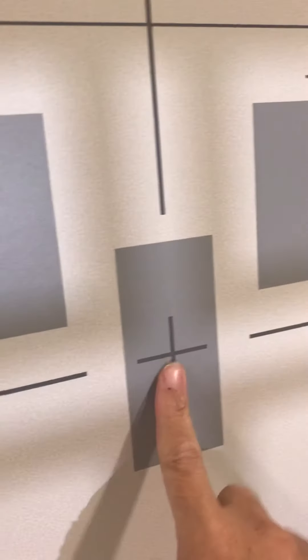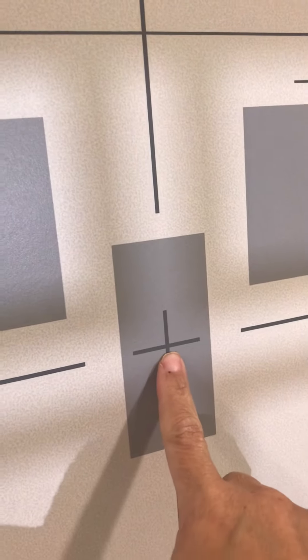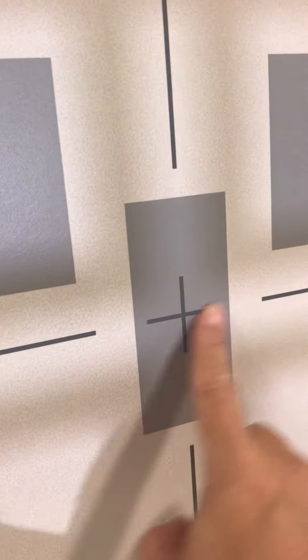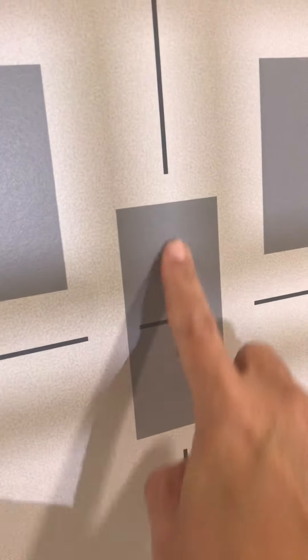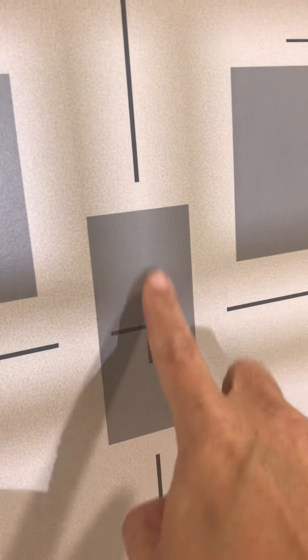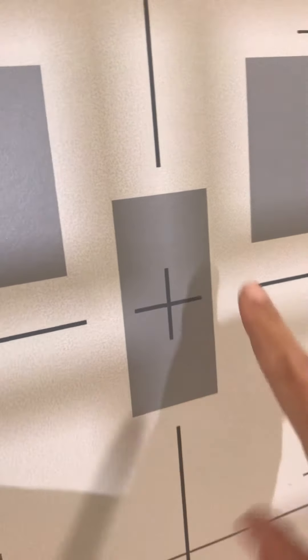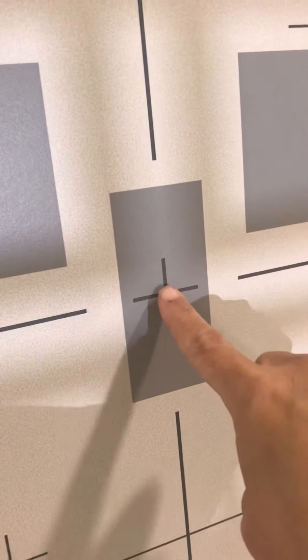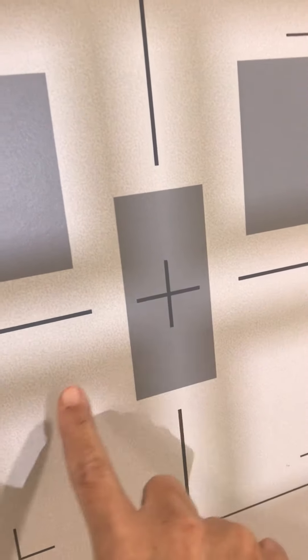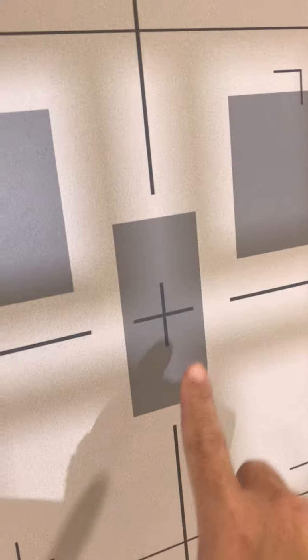Turning the light back on so you can see it — the crosshairs are in the center. On the wall bucky, there is an X which marks the center ray location, and you want to make sure that your crosshairs line up with it.